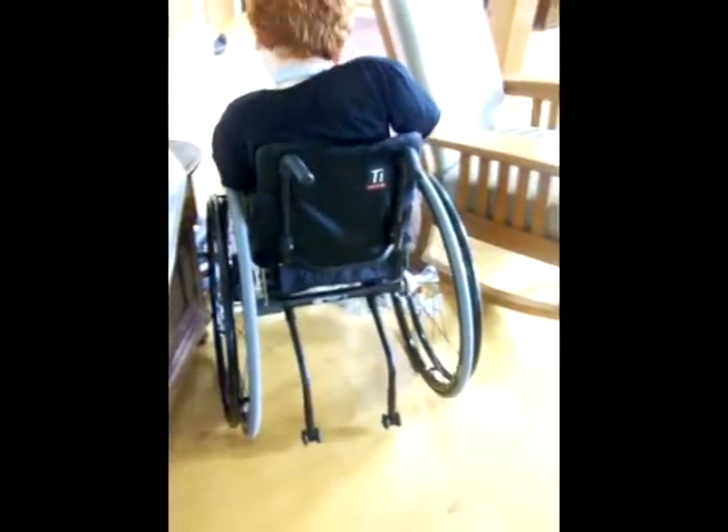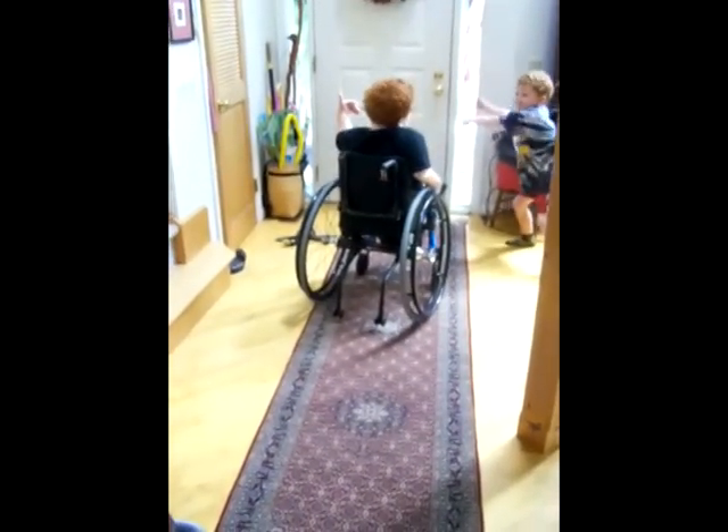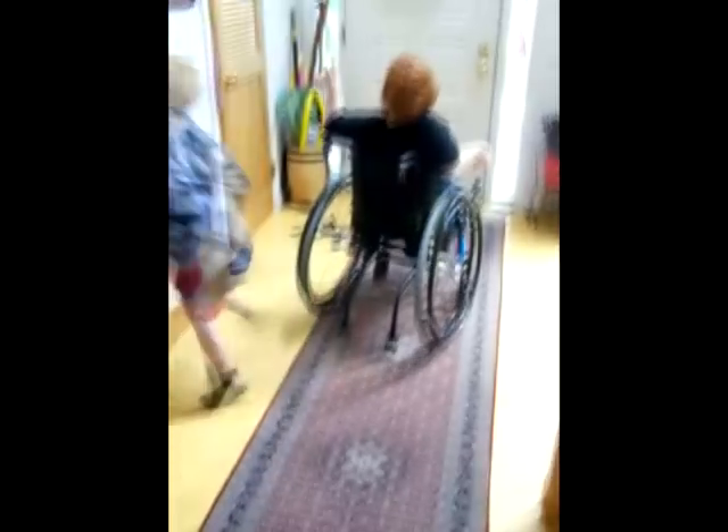Well, this is great. Can you do the rug? No — I probably could, however that thing is in my way. What's in your way? The vacuum. Let me move the fan and this chair. I can move the chair. Rug to the door — push to the door. Not easy. Turn around.